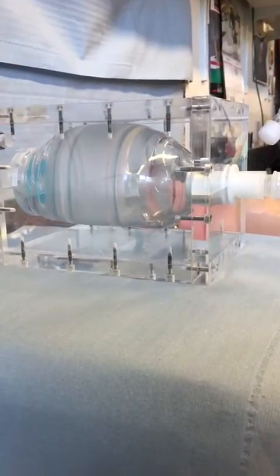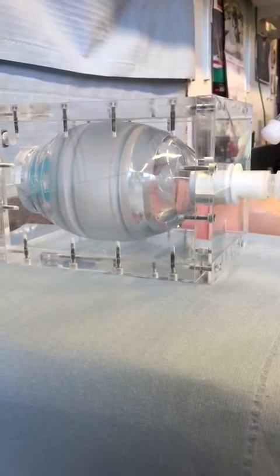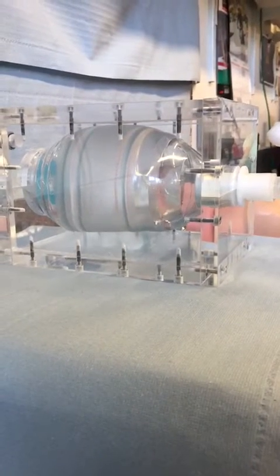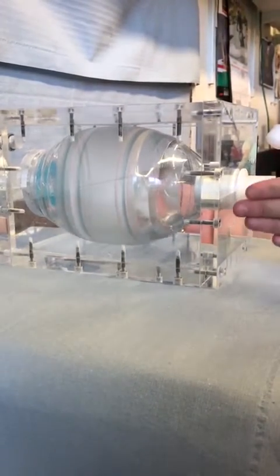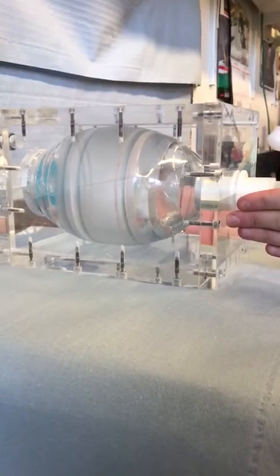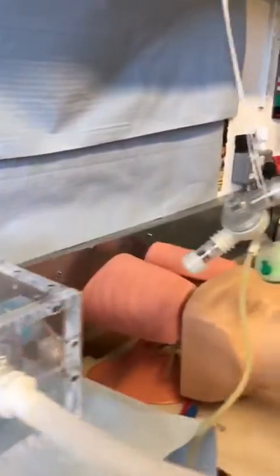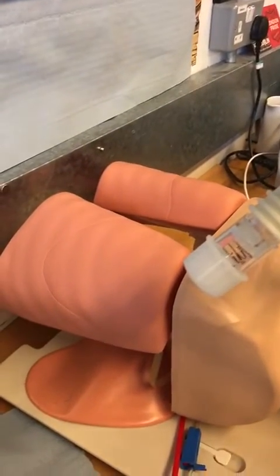Inside the box is a standard ambulance bag. These bags are normally compressed by hand to provide air to a patient, but in this case we compress it using the pressure from our air supply. This is then used to ventilate the patient, and a valve allows the patient's lungs to relax.